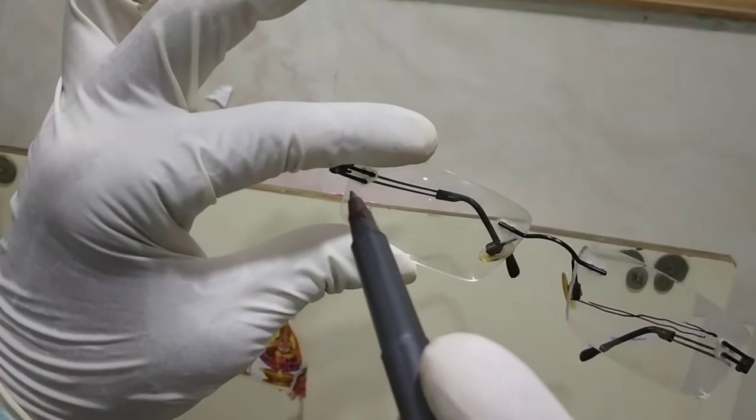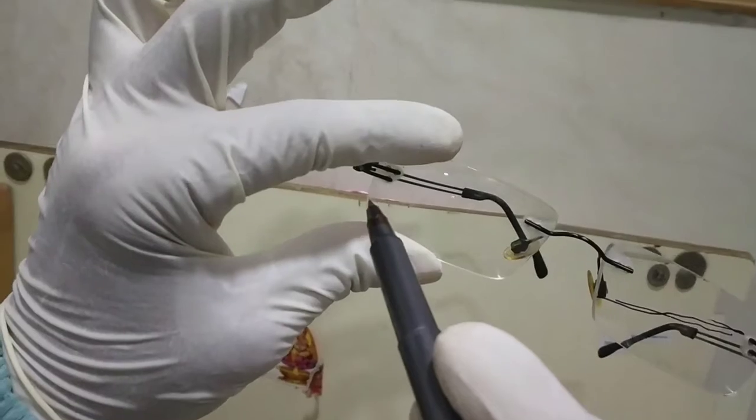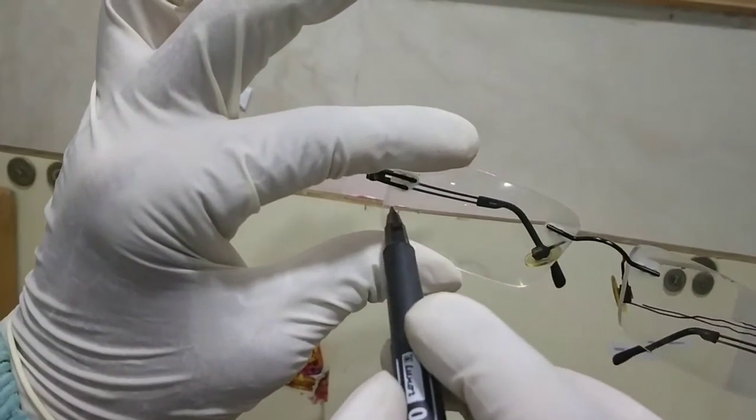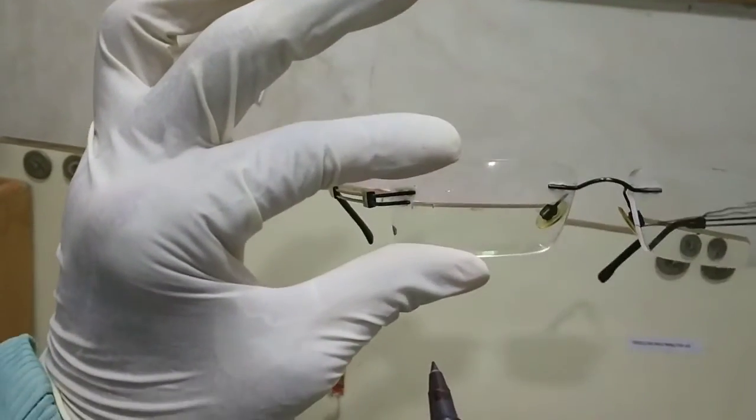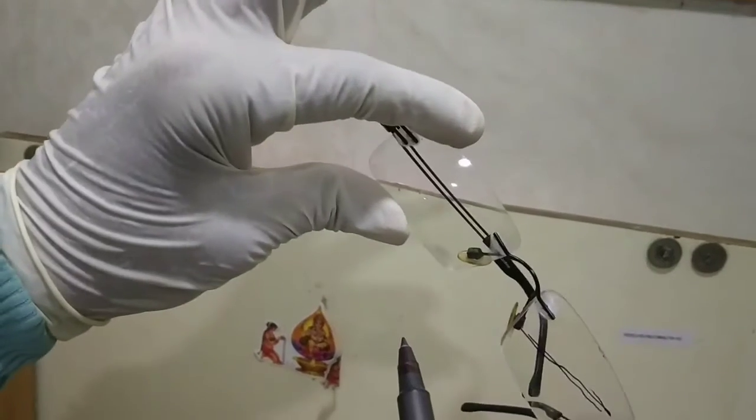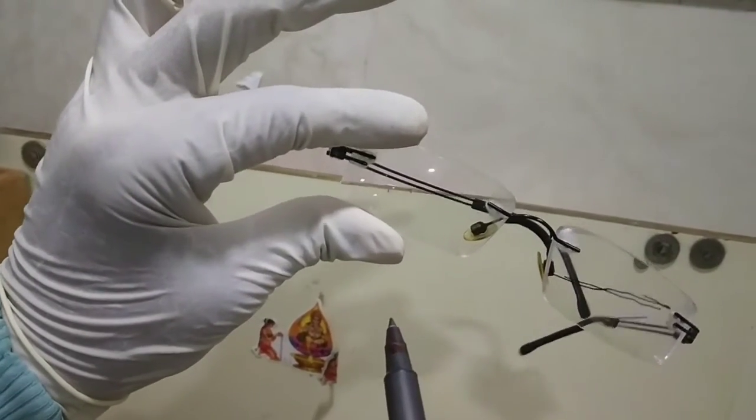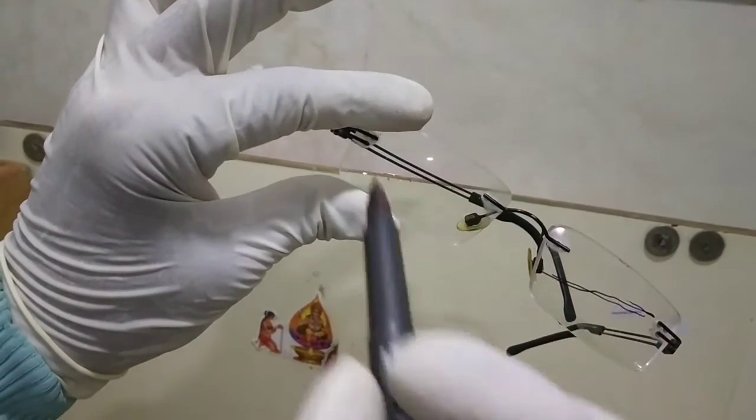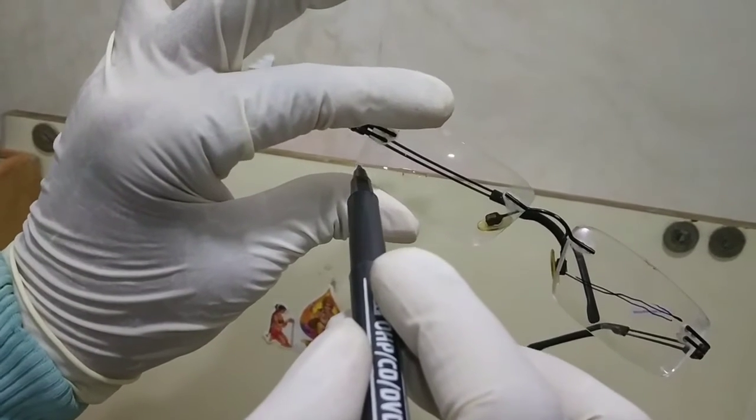You can see that it is now aligned. The line on the outside of the lens is visible. You have to mark that. After making it straight, you can see this is bending. Now it is still not in the line. If you do it a little straight, now you can see this is aligned properly.